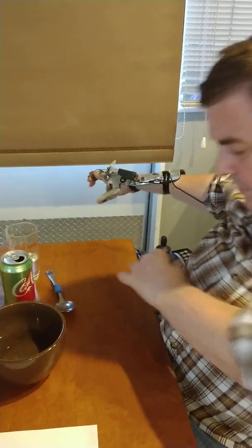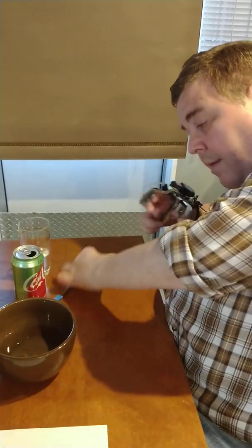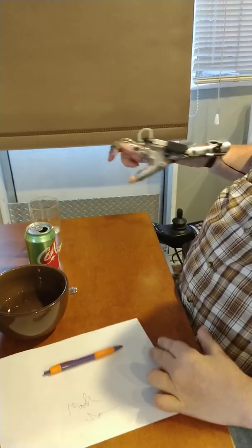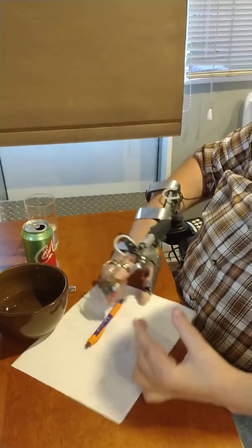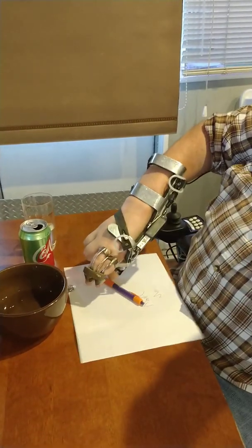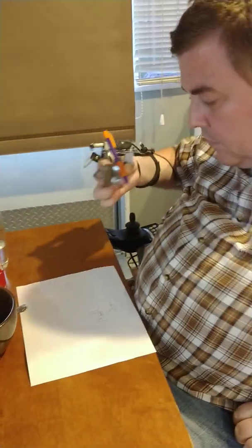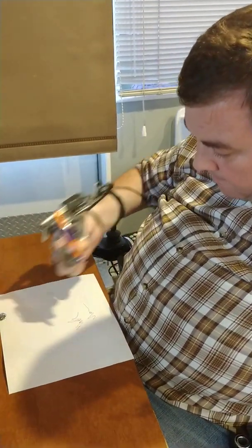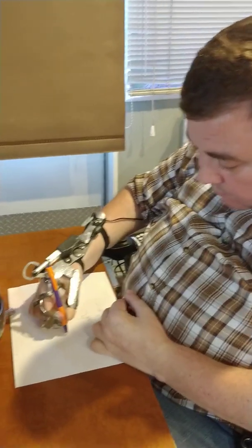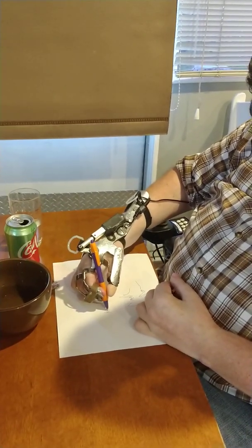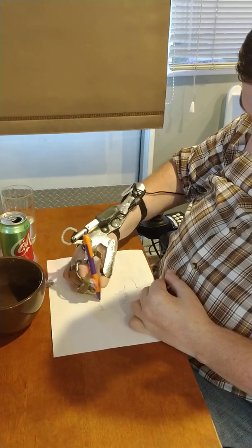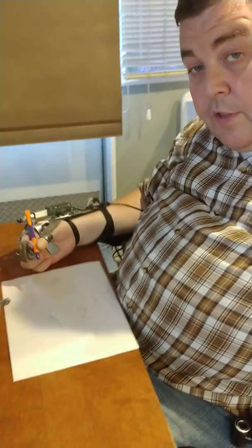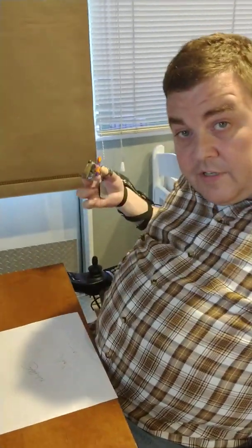So those are a few little pieces or rooms for improvement or differences. And I don't want to do this as a marketing thing or saying how the power grip is better. It works better for me because of course it was designed that way. And I have hundreds of disabled folks using that. You can see I just picked up that pen without using my other hand. I can see what I'm doing. I can see what I'm writing.